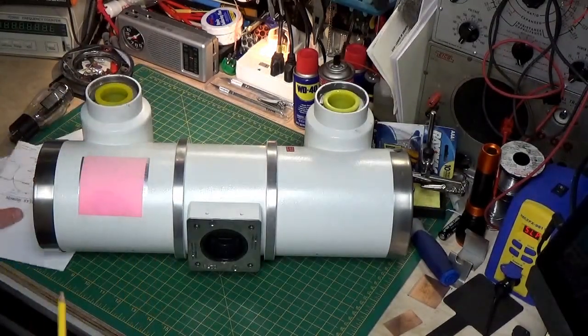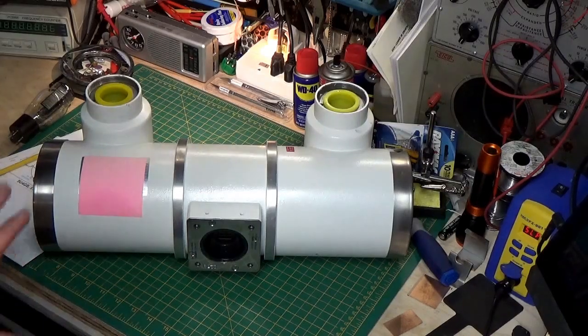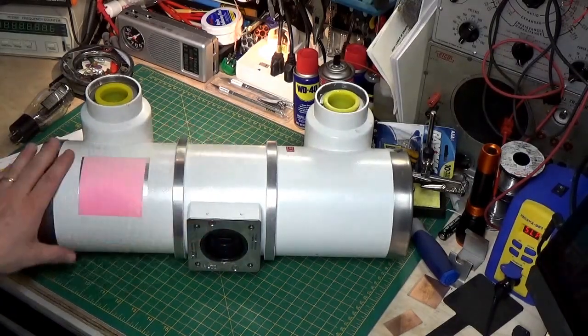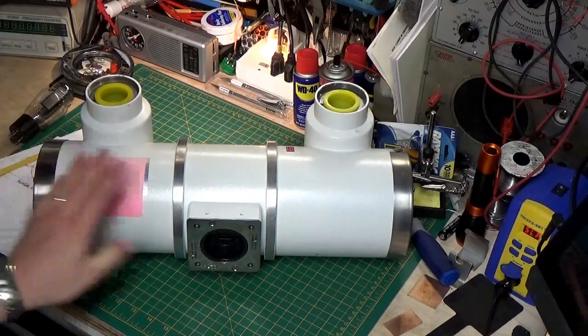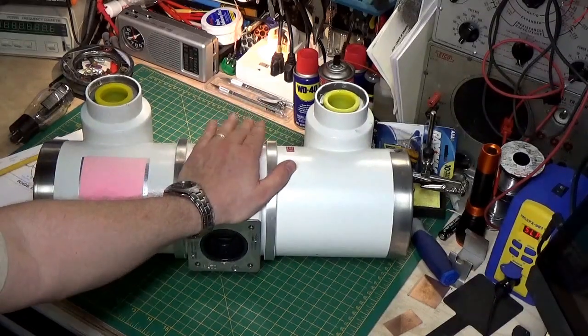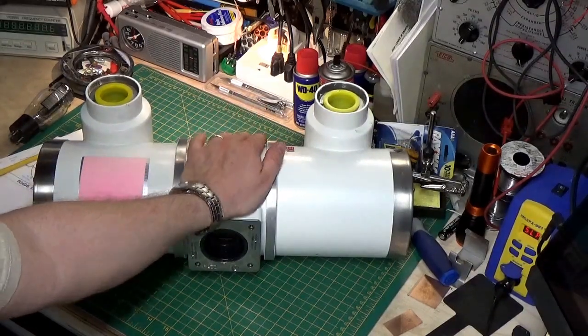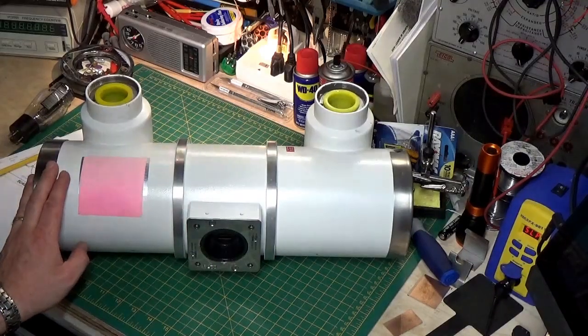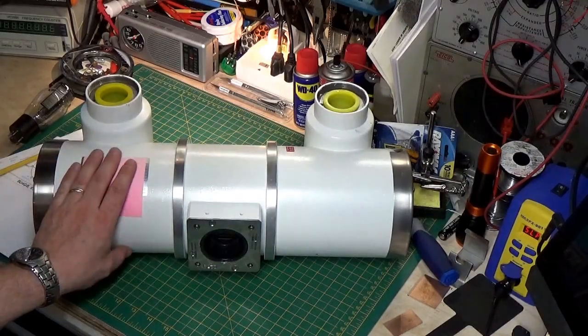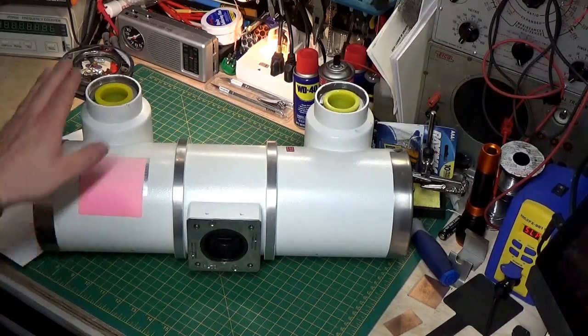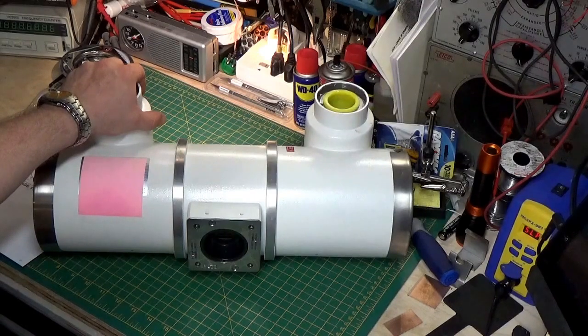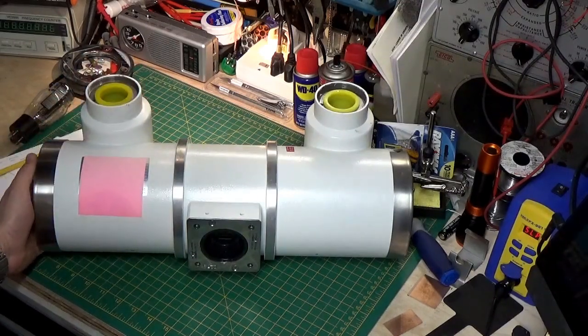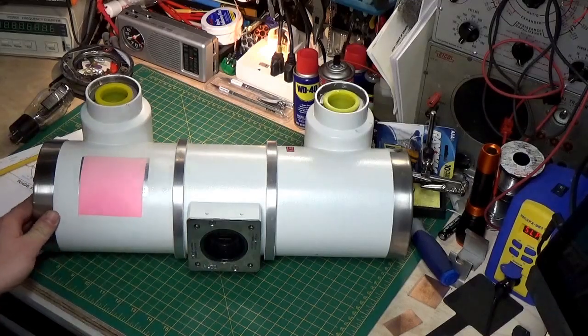Now, I would be remiss if I didn't speak to this. But understand, this is only for entertainment purposes. And you should never, ever try to work with one of these or mess with one of these, unless you're a trained engineer on these. You really need to understand how it works. It's very dangerous. These work with very high voltages and they also produce radiation. So, this is not a toy and it's not something to be played with. But, it is interesting.